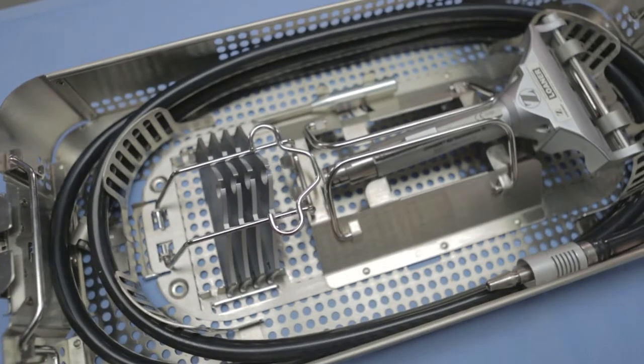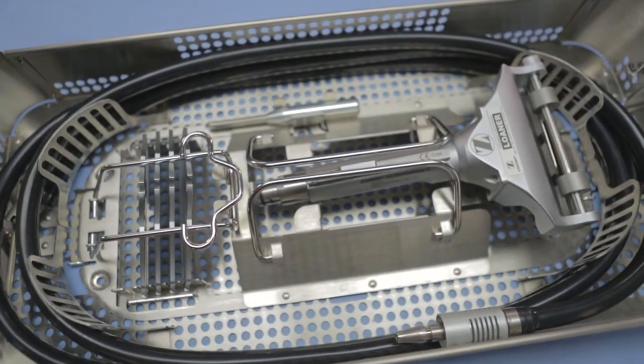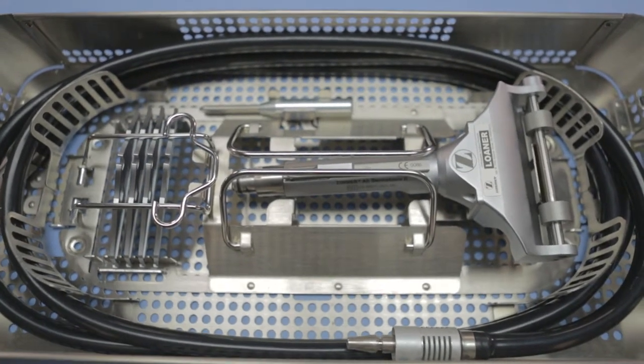The complete system consists of the handpiece with width plates and screwdriver, along with a sterilization case and hose.